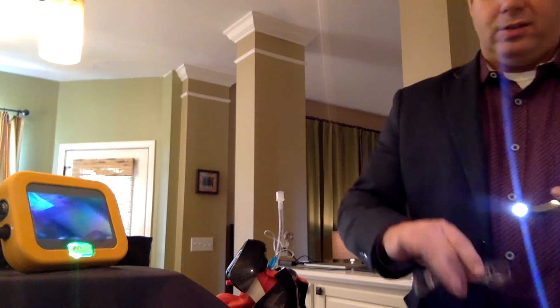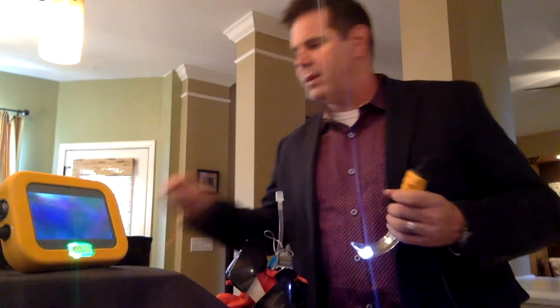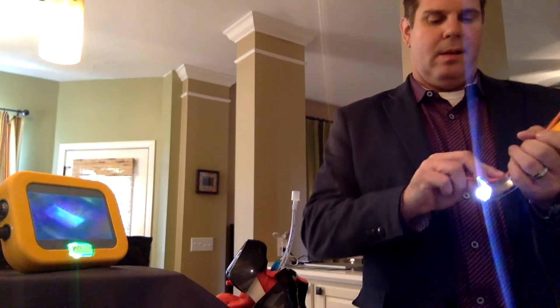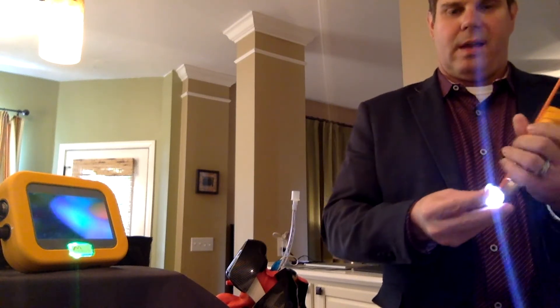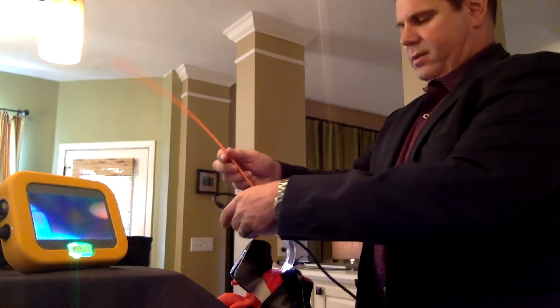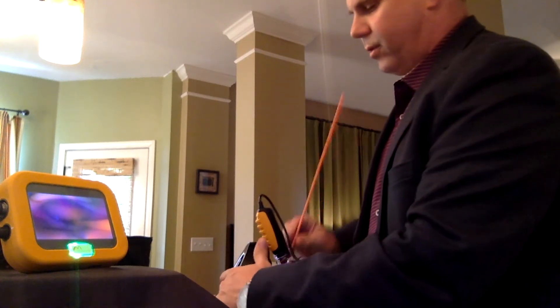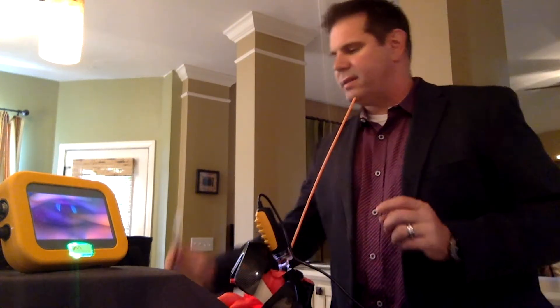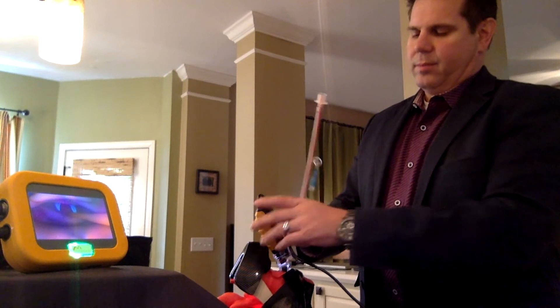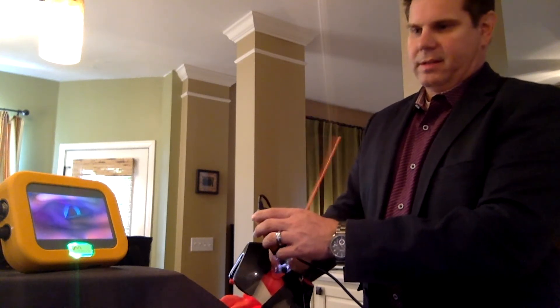In addition, on the sheaths we have a patented bougie port. On the side here, you can actually slide our patented bougies that have a curved tip on them. These come 10 per case as well. They're one size fits all and slide in for adult sizes. Now we can intubate using the bougie instead of the reusable rigid stylet. Slide the bougie through the vocal cords, then slide the ET tube over the bougie. Make sure you take the bougie off to the side of the sheath in the channel and then slide it in place.